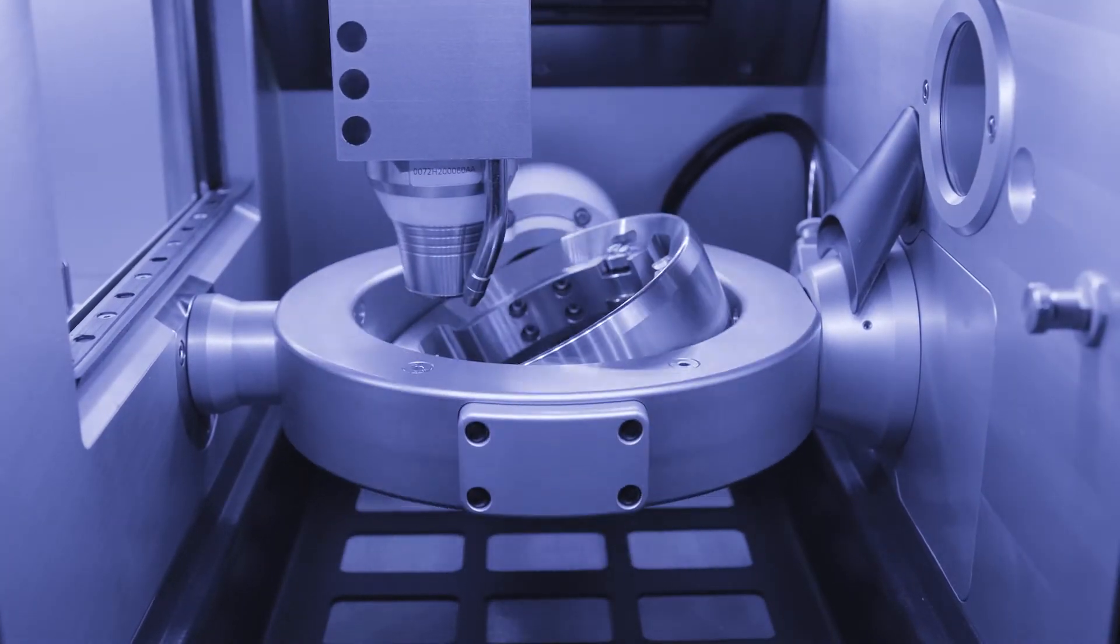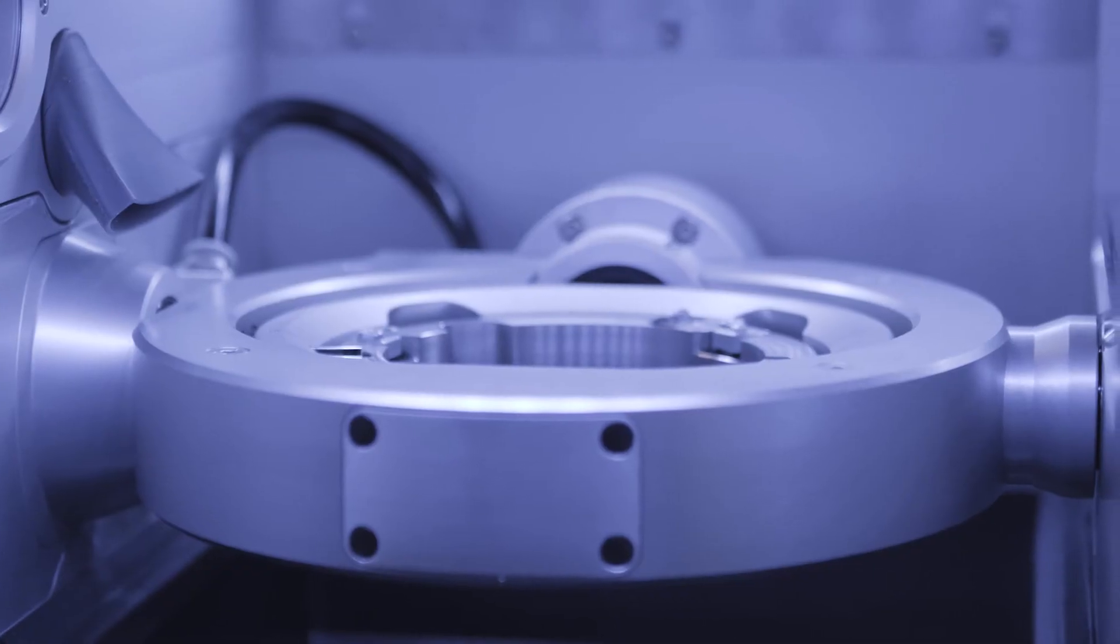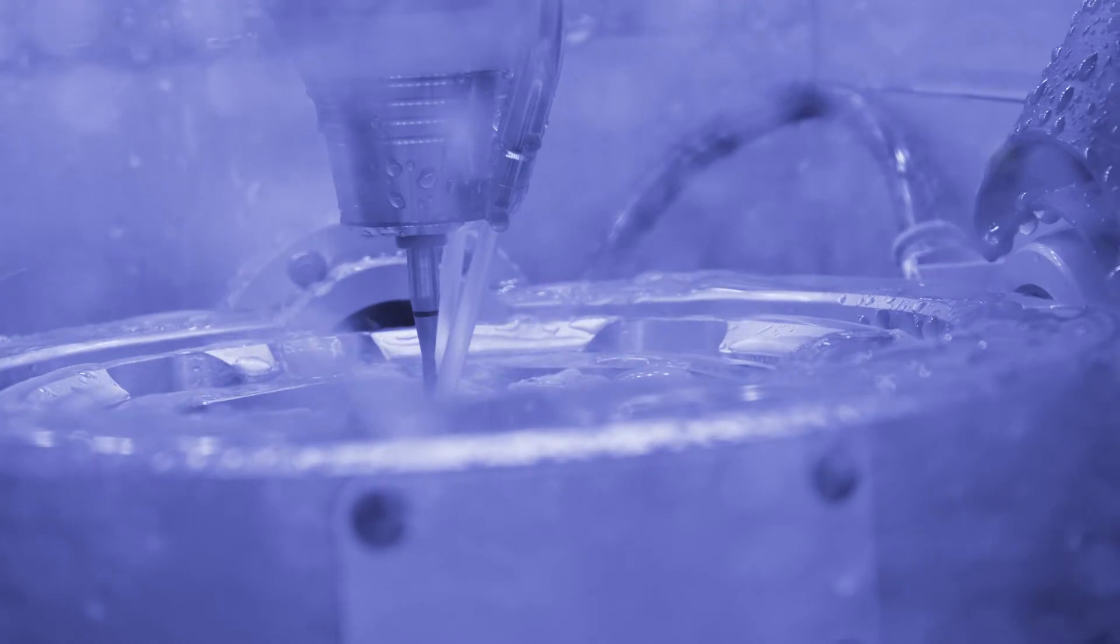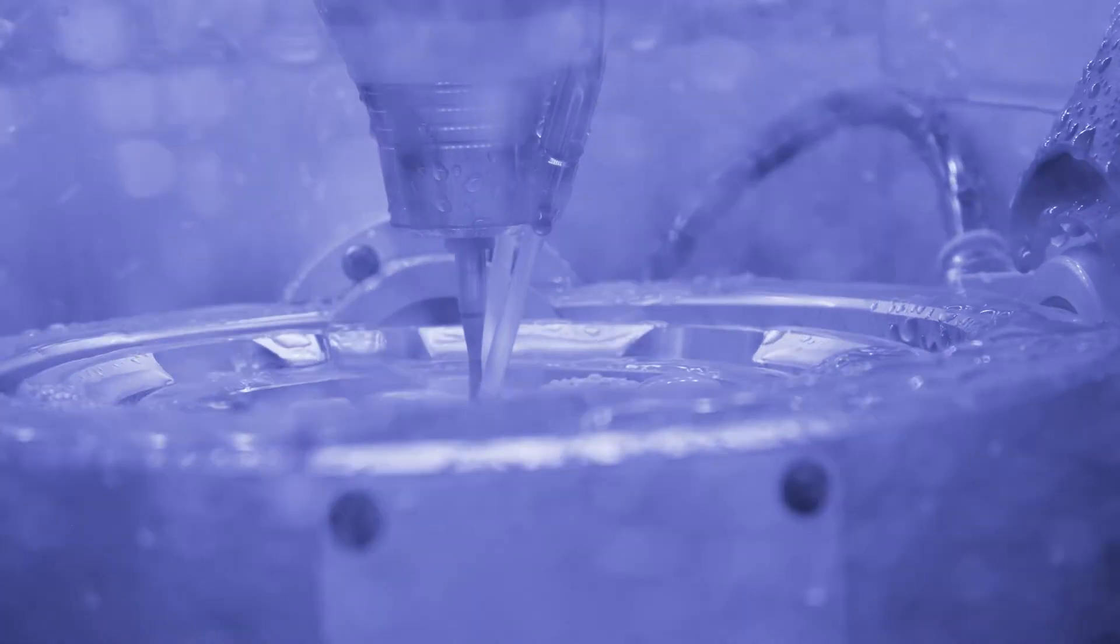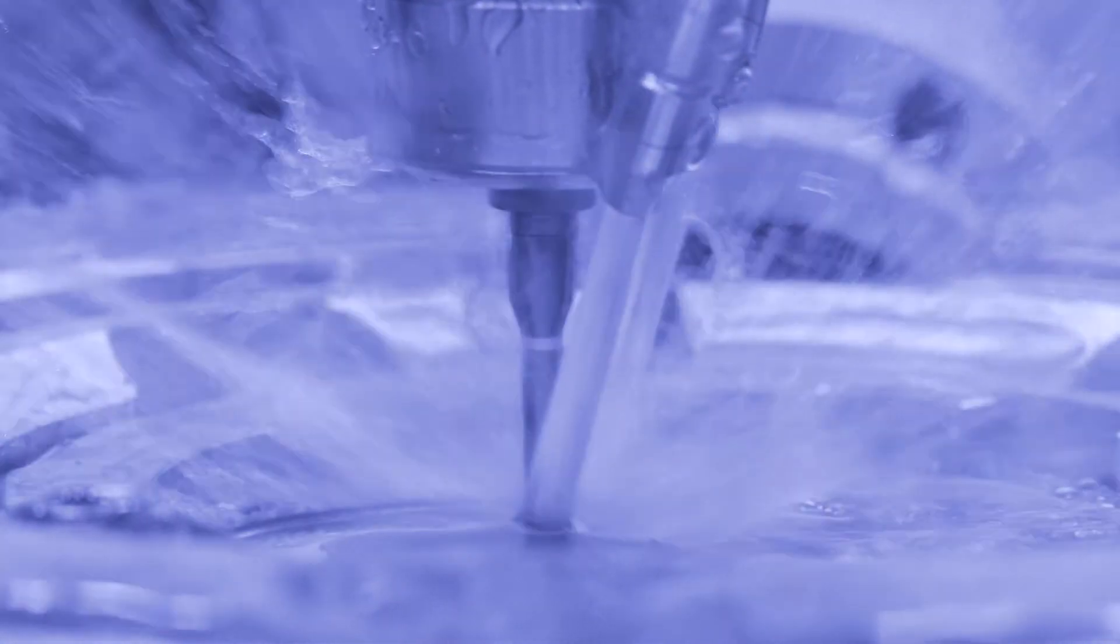The machine shows a very stable double bearing suspension and an extra short spindle, which lend the machine a high resistance to vibrations. This permits milling of particularly smooth surfaces, a very important aspect for telescopic work.